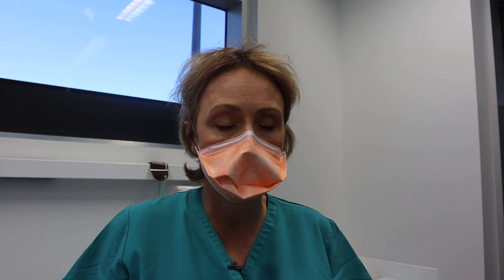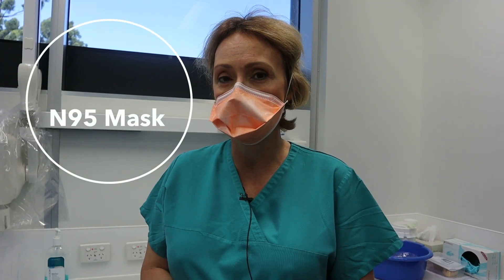With a big breath — and just with a normal breath — you can actually see the motion of the mask back and forth as I breathe in and out, so that's a fairly snug fit. This mask has quite a technique involved.